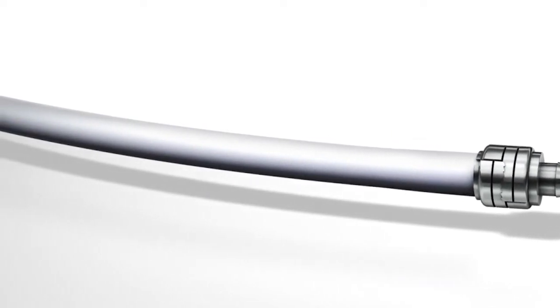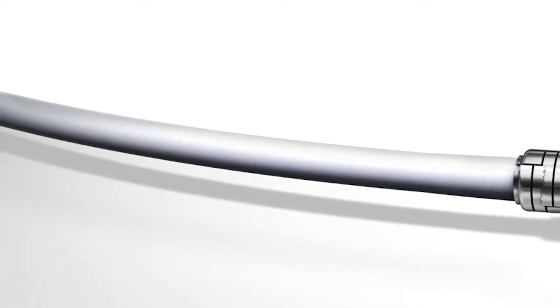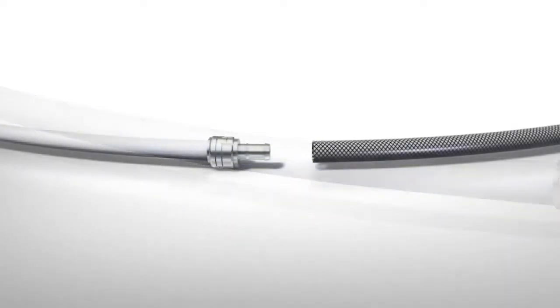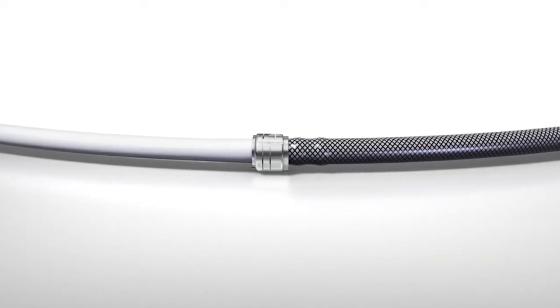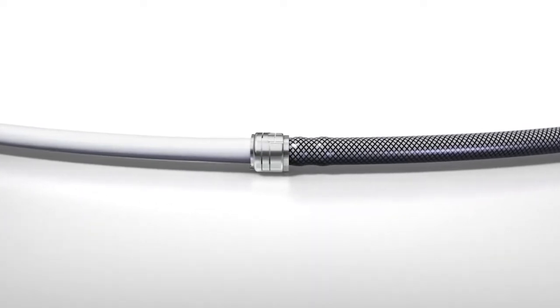Only grafts specified in the instructions for use may be used with the adapter. The HeroGraft venous outflow component and adapter are sold separately. See the instructions for use for full details.